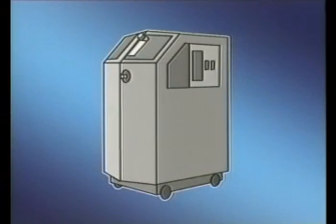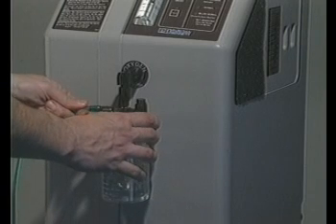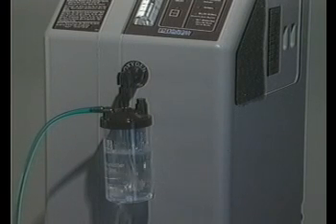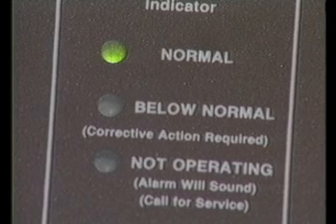A second source of oxygen is an oxygen concentrator. Oxygen concentrators require an electricity supply to operate, and they work by physically separating oxygen from the air. Compact, reliable machines that comply with specifications issued by the Acute Respiratory Infections Programme of the World Health Organization are now available. They may provide a cheap oxygen supply in small hospitals and overcome the difficulties of transporting cylinders over long distances. Oxygen concentrators complying with the World Health Organization's specifications can give oxygen at a flow rate of up to 4 litres per minute. This model has a built-in flow meter and an indicator to confirm the concentration of oxygen delivered.